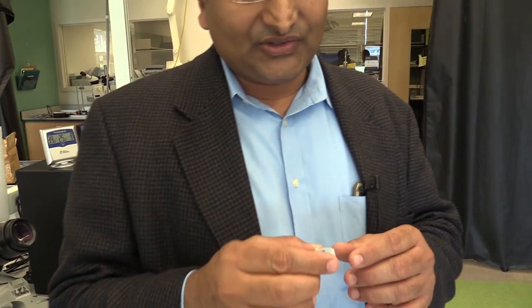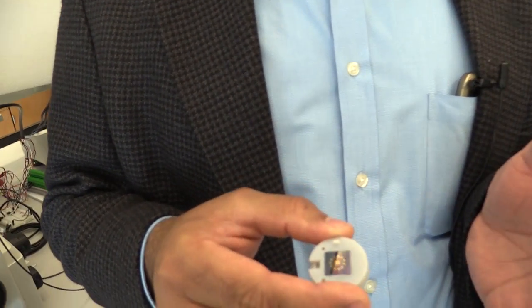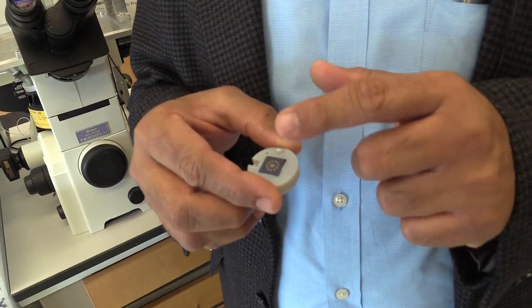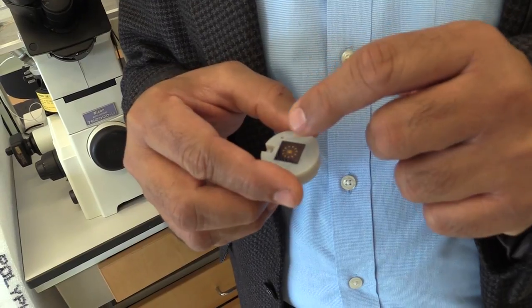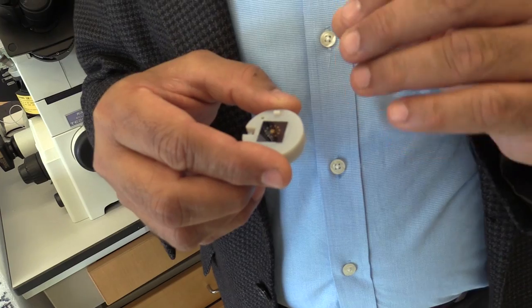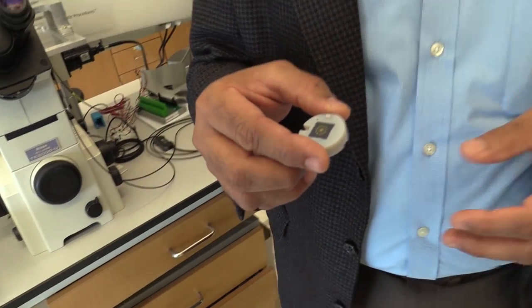And this is pretty much a big setup here, and what we are going after now is trying to develop a portable desktop diagnostic device. Something very small. So here we can put a breast tissue chunk at the center. We have a micro heater. So now in addition to the electrical and mechanical properties, we can actually even figure out if there are changes in the thermal properties, and our studies have shown that there are changes between normal and cancerous breast tissue.